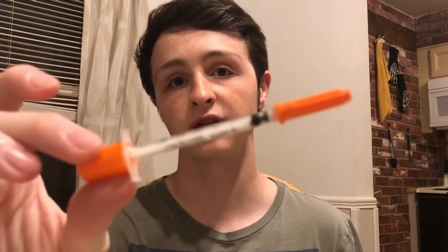You pull the needle out and you're going to see drips of insulin coming out the end. If you're taking just one or two units, that could be half of your dose going out the pen right there — it's not consistent with a pen. So instead, I like to use syringes such as this 3/10 cc syringe right here.